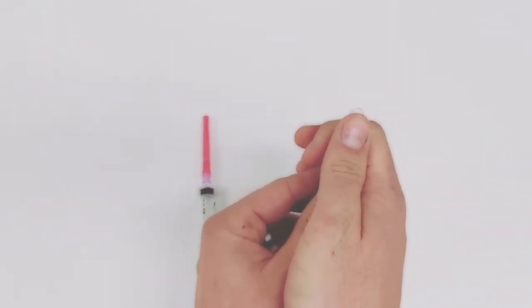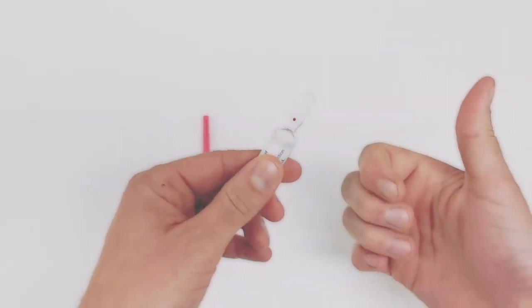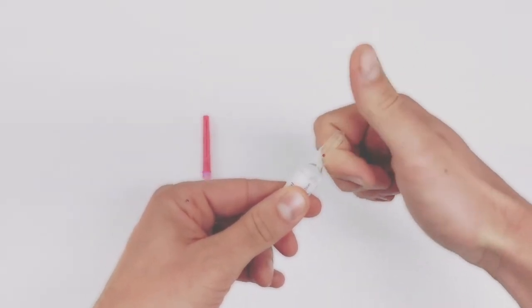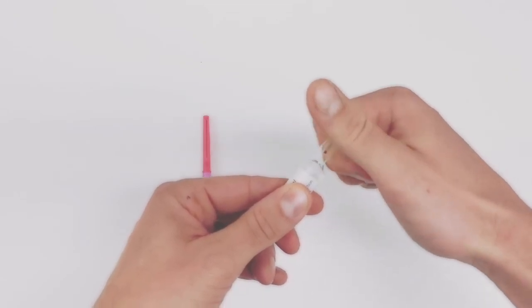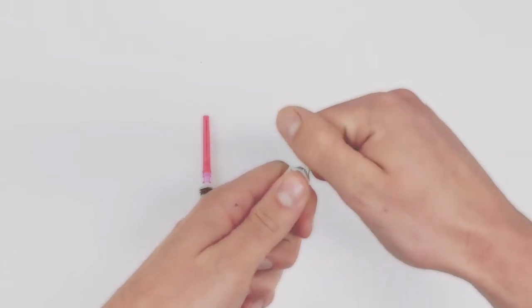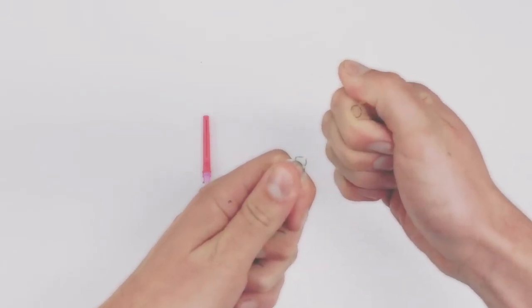Now some people pop like this. I wouldn't recommend it because you can cut your thumb. I tend to put my knuckle behind with the blue dot pointing towards me—or the red dot in this case—and then I loosely put my thumb on top and I'm literally just rotating my wrist like that and it'll pop off.